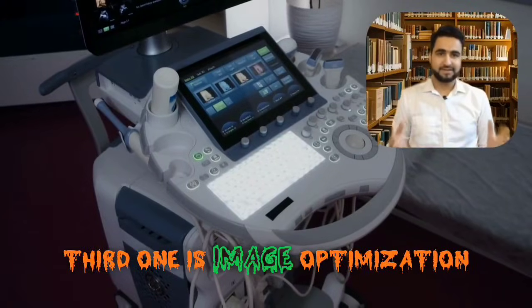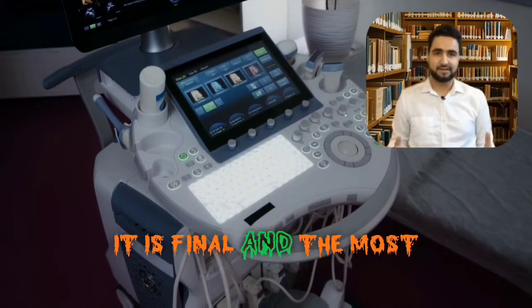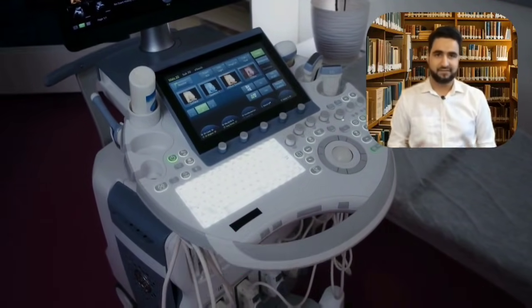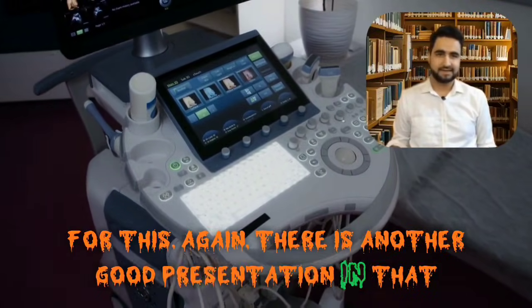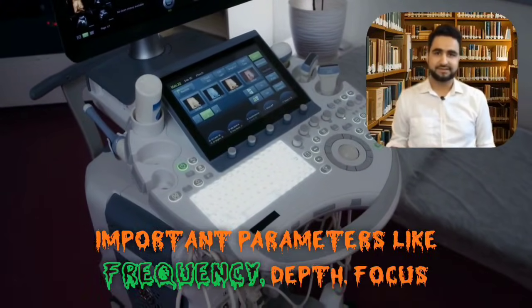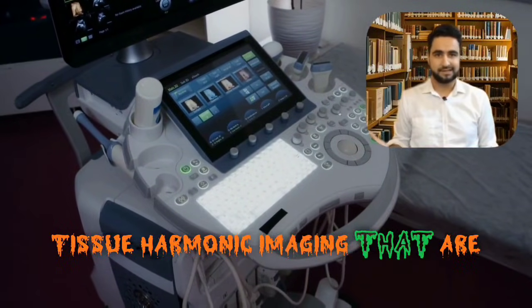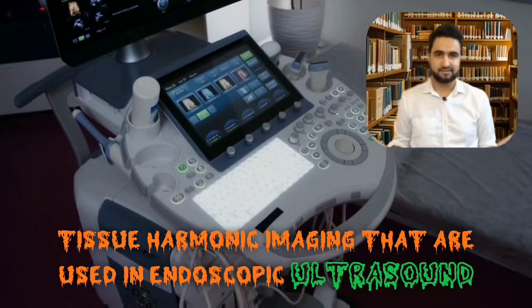The third difficulty is image optimization — it is the final and most important part in endoscopic ultrasound. There is another presentation covering this, where important parameters like frequency, depth, focus, pulsed repetition frequency, and tissue harmonic imaging that are used in endoscopic ultrasound are discussed.